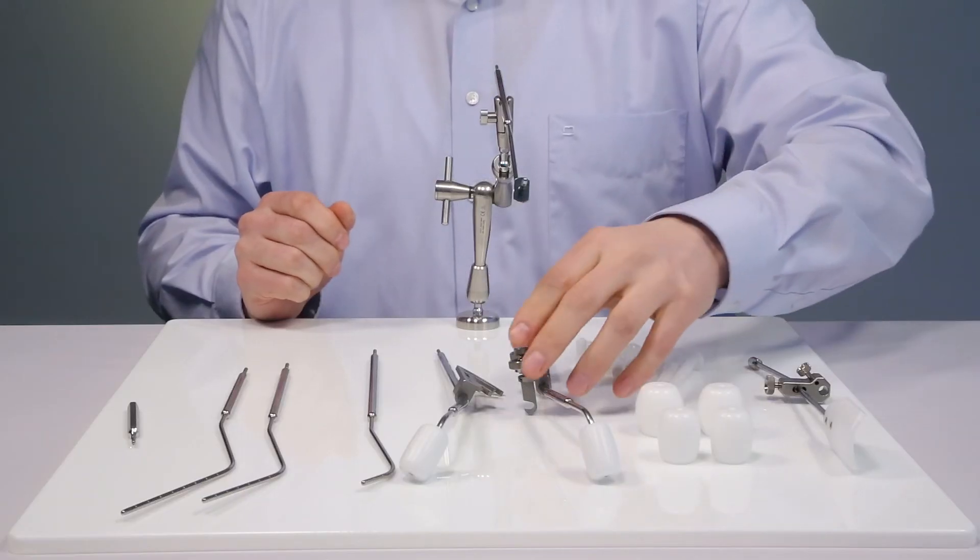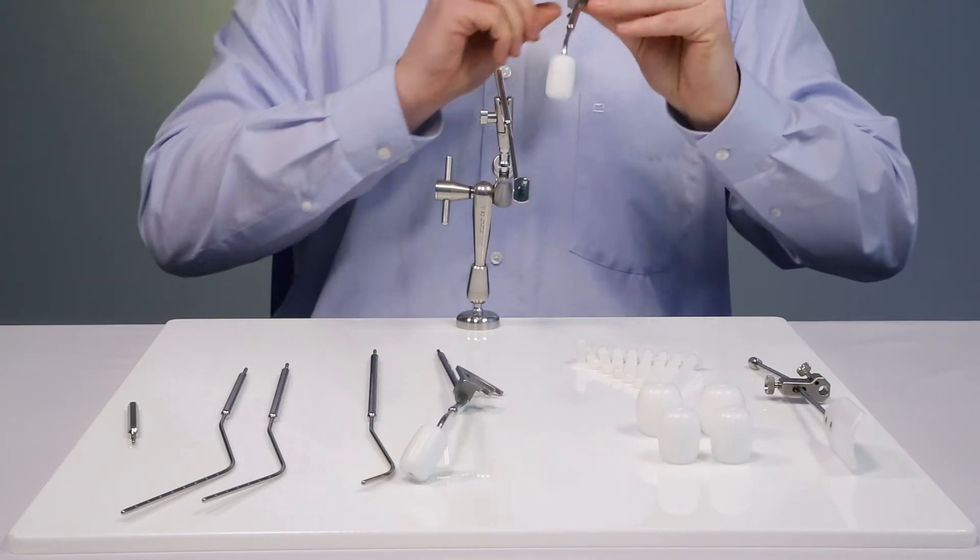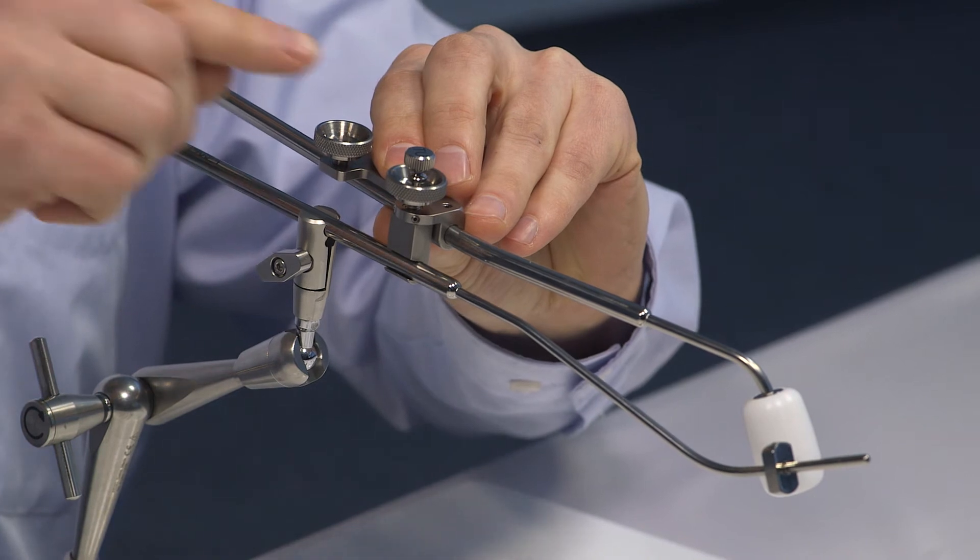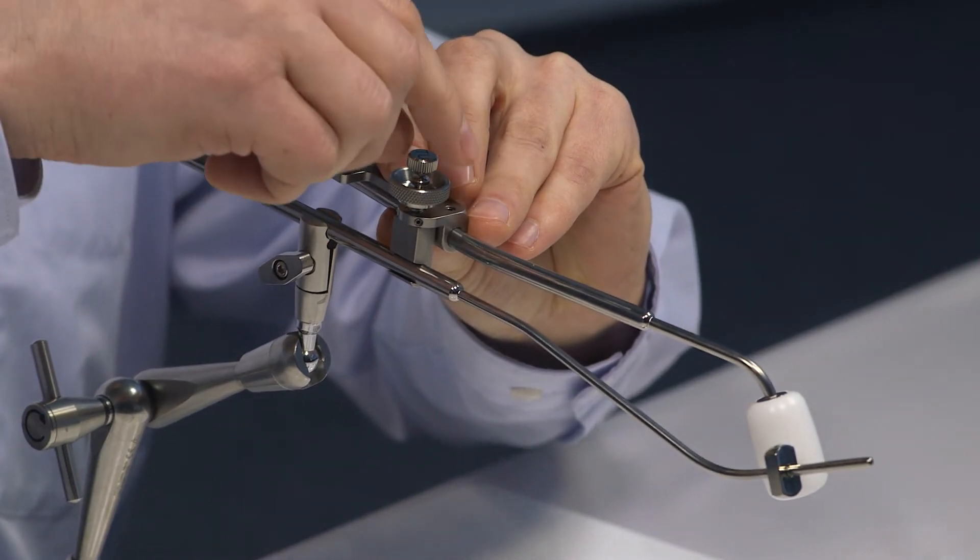Now the right ovoid tube is inserted and fixed with upper front screw on the IU tube.